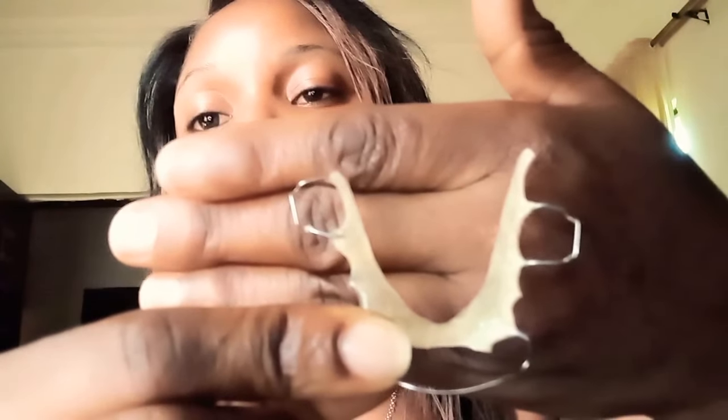How to wear this — I place it correctly. This side of my jaw is not the same as this one. Here is perfect, very perfect, but here has the other shape. So you can see this side is longer than the other. I have to be careful — if I turn the short one to the place that is long, wearing it is also very hard for me, and that's what I've been doing. So it has been so very painful wearing this retainer. I'm getting used to it.